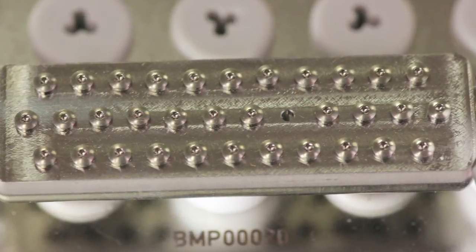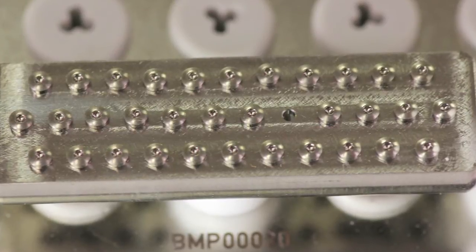Each Meisinger pin is a little thicker than other pins available on the market to achieve this needed strength.